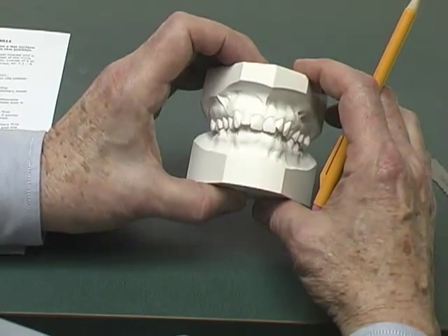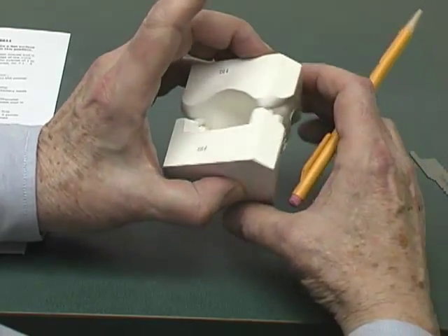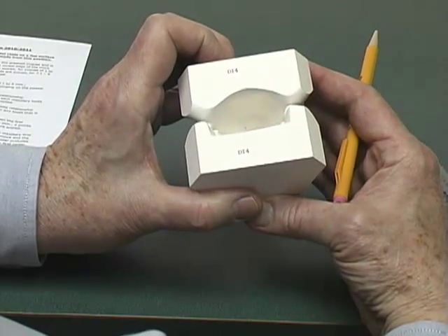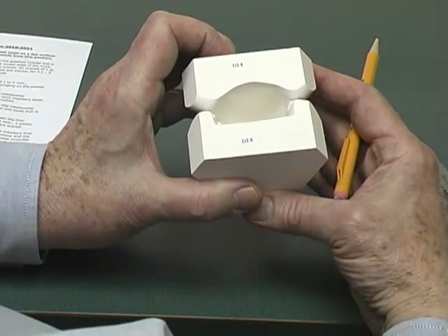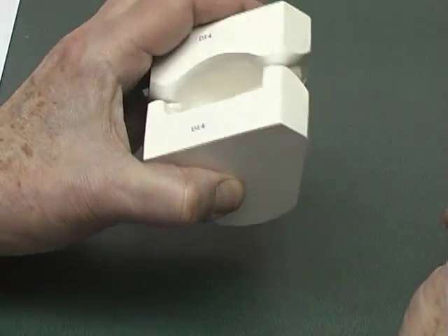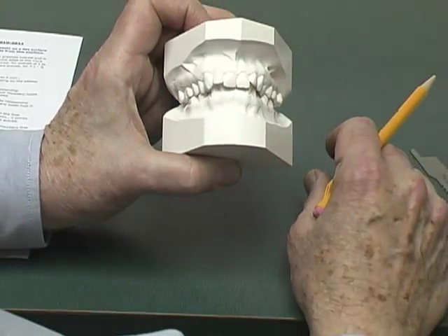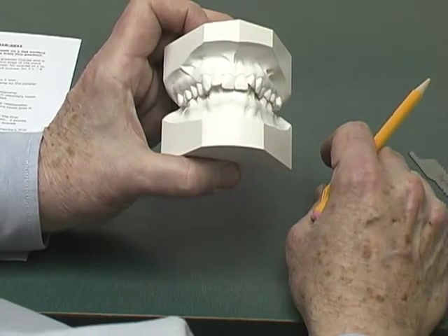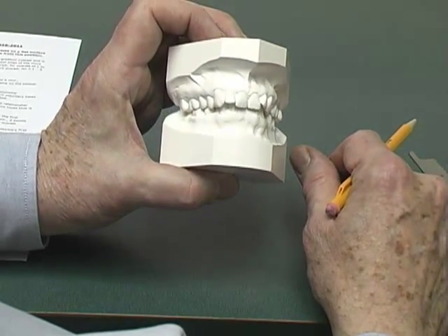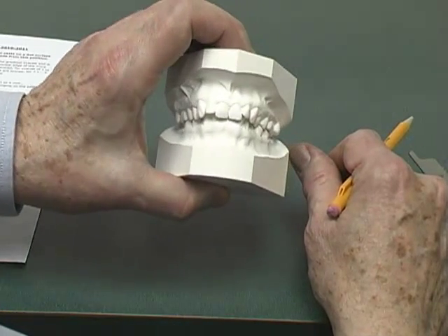This cast also demonstrates impingement on palatal tissues — they are touching up there — plus it is a 100% vertical overbite, so this is where you would score five points. As we all know, Division II cases will frequently demonstrate this.